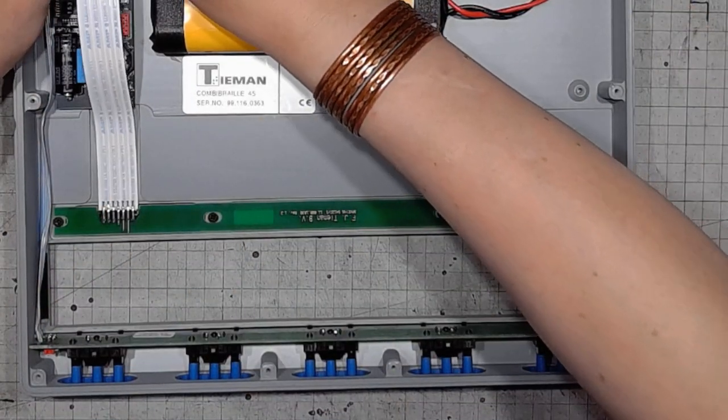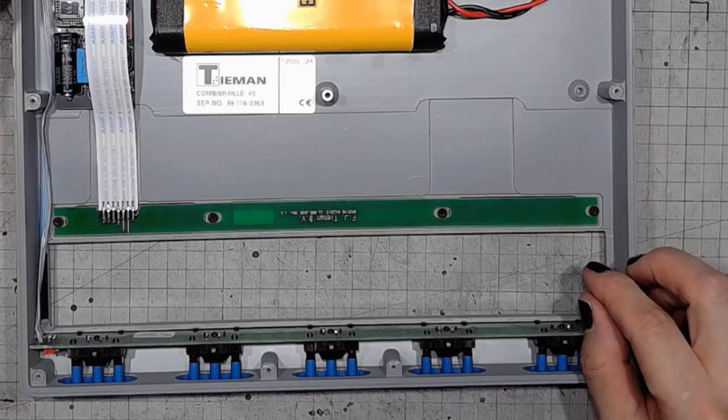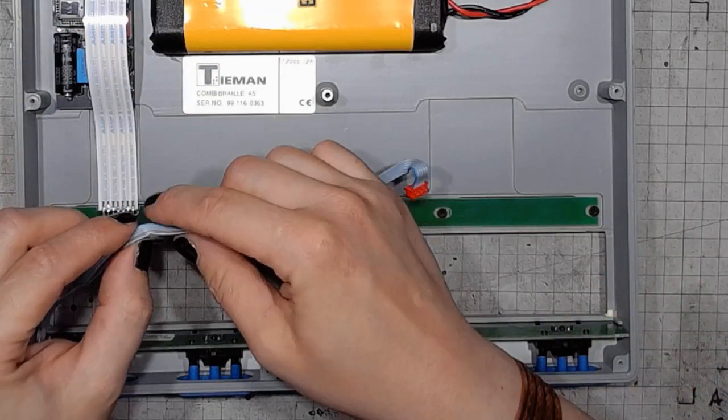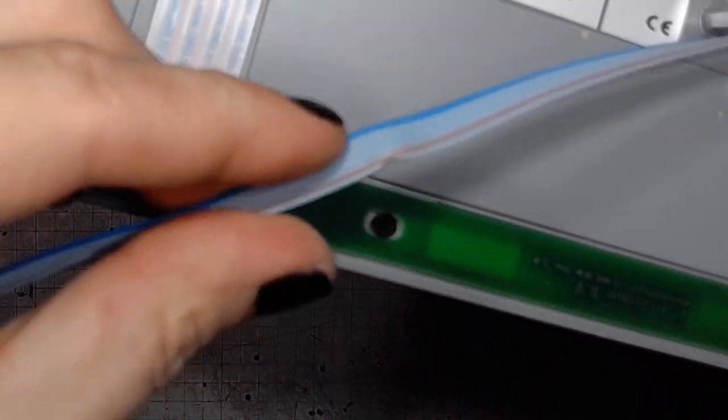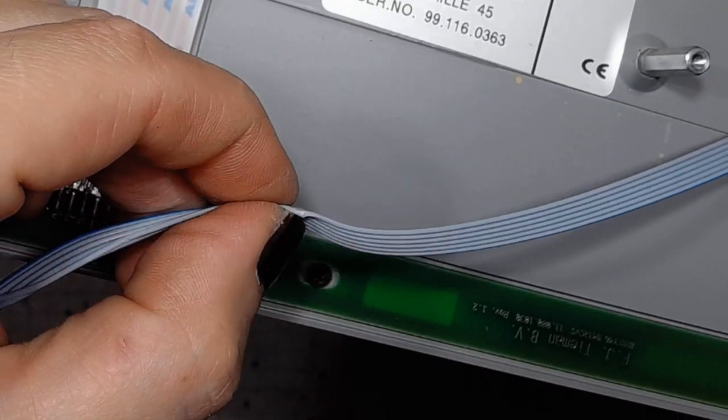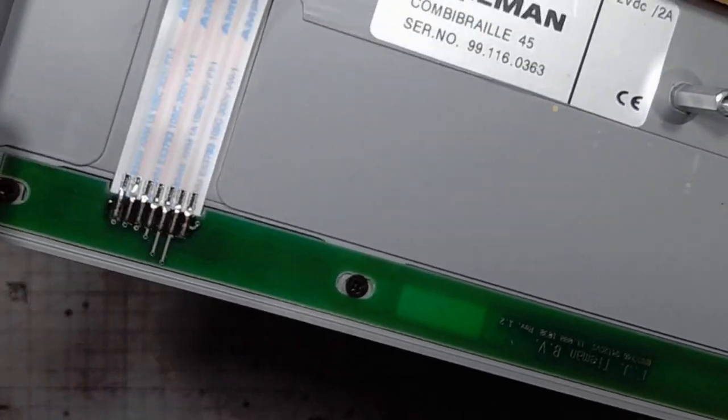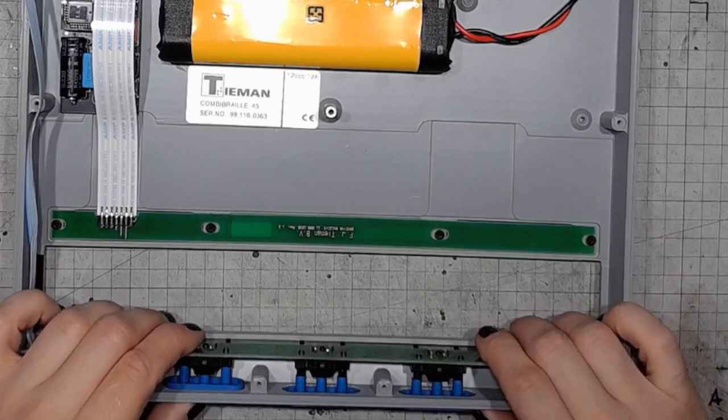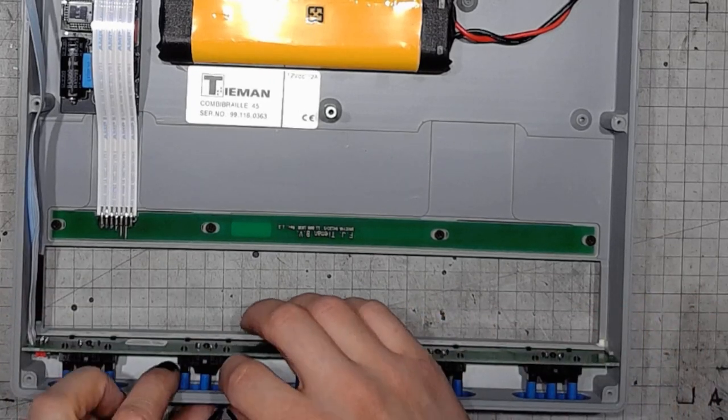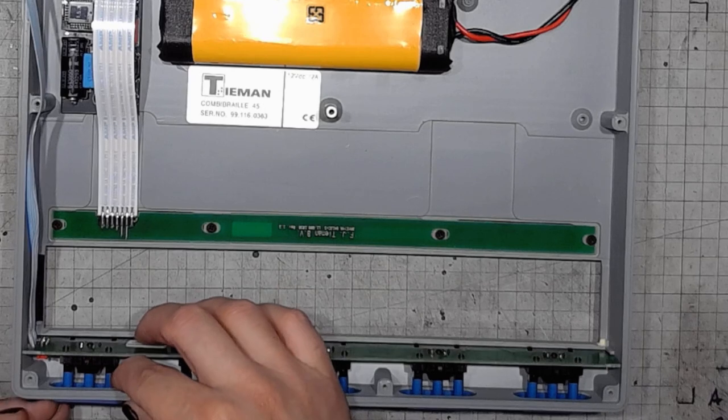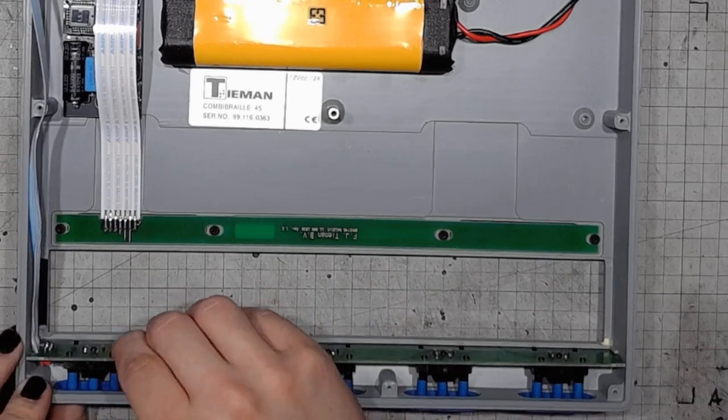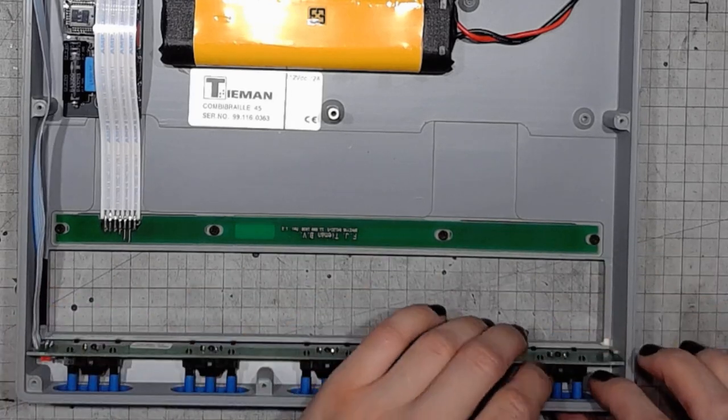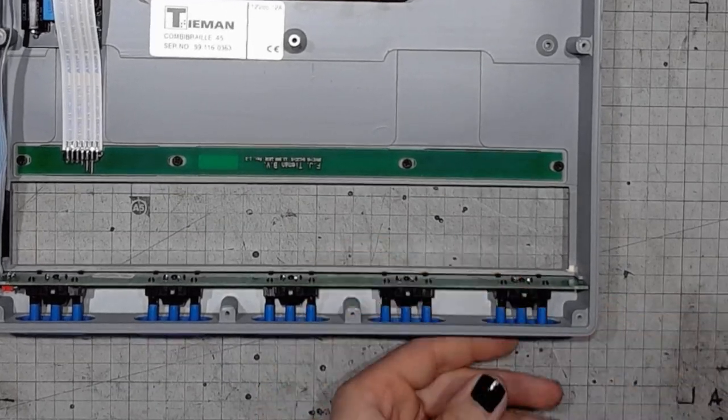This connector is operating yet another ribbon cable. This does not look good if we take a closer look. Looks like the cable has been crushed by something. This goes to the switch module. If I can liberate this switch module from here.